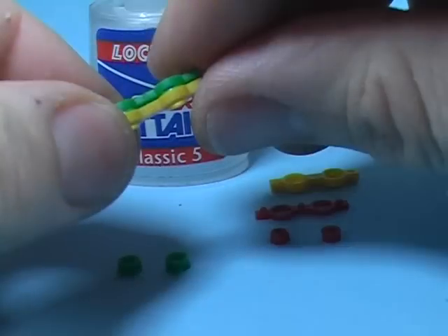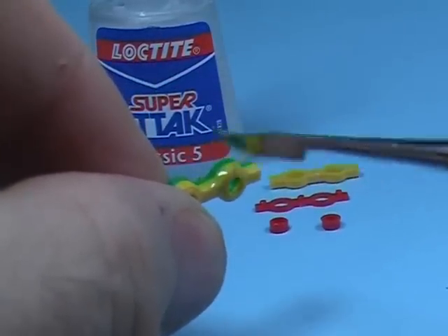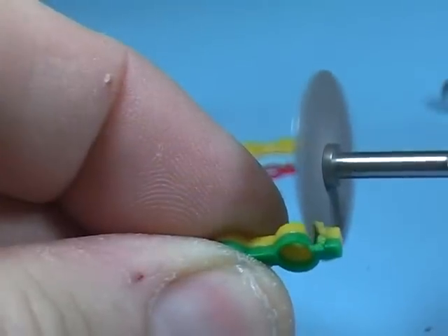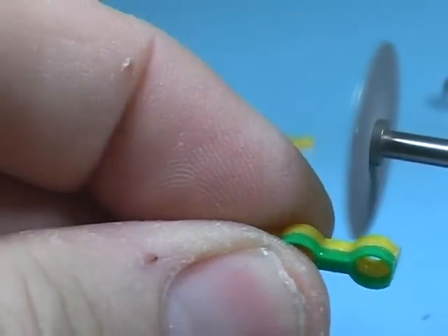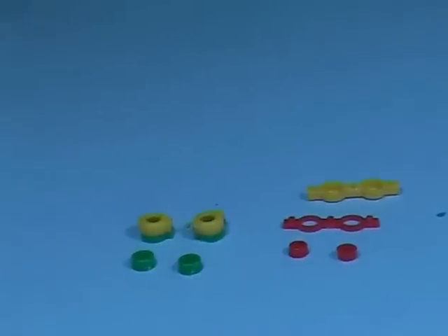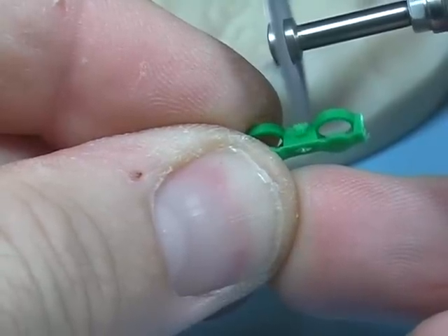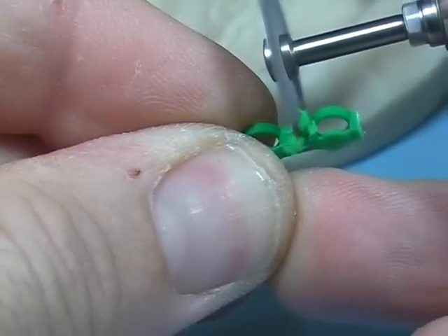OT Box Classic bars come in two parts to be glued together in order to split and use their boxes. Here we can see them split and ready to be positioned using the positioning rings. OT Box Special are instead ready to use — no gluing is required before splitting them. They are used in labs with the same results.